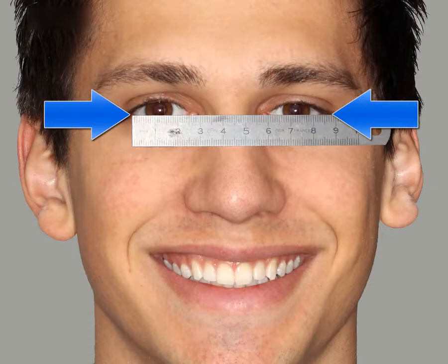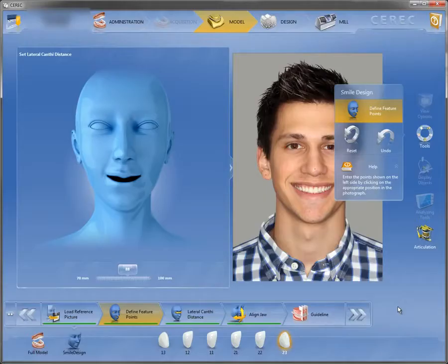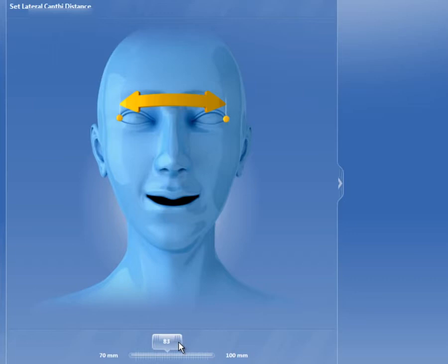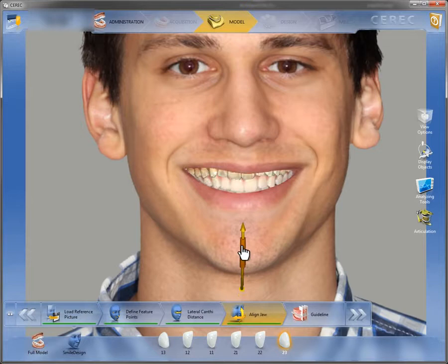The distance between the eyes is measured — specifically the distance from the outer corner of the left eye to the outer corner of the right eye — and the result is then entered in the software. The magnification scale is then calculated based on this to scale the model to the portrait. The calibration can also be adjusted using this measurement.